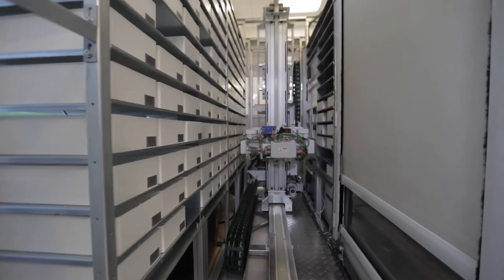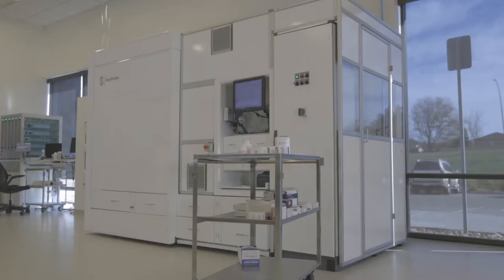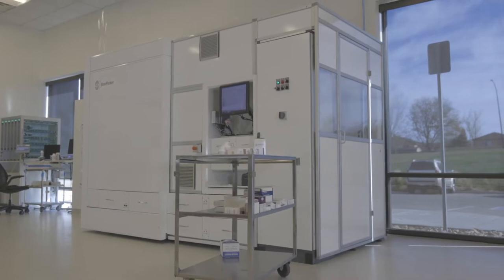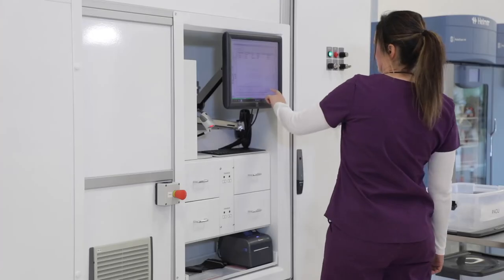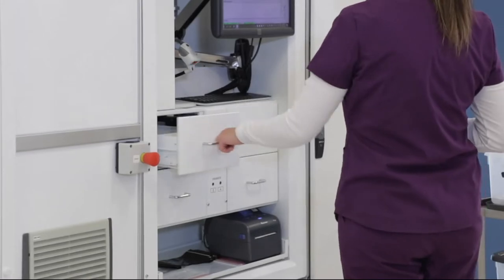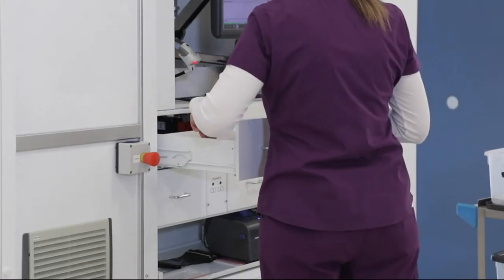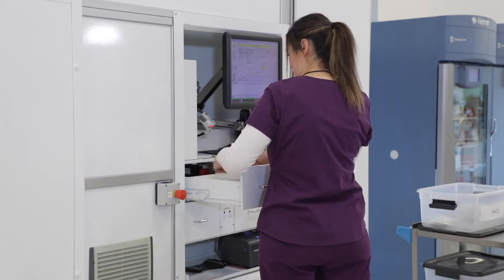The BoxPicker Automated Pharmacy Storage System was designed to support safe, efficient, highly automated medication picking. This video details how medication orders are received, how BoxPicker ensures safe, accurate picking, as well as how the system supports efficiency through optimal workflows.